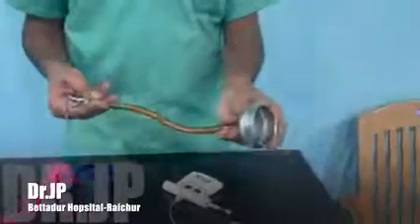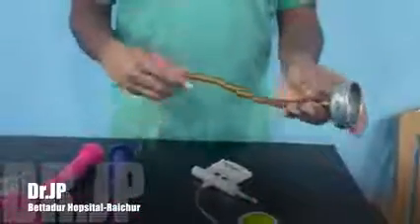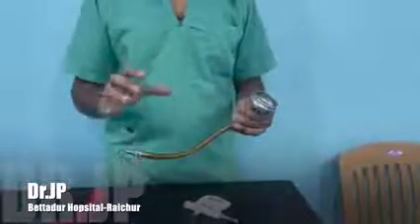The tubing eventually connects to the suction apparatus. It has a release valve where we can release the pressure whenever we want. Malmstrom's innovation really revolutionized instrumentation delivery. In Malmstrom cups, the good thing is there is a good amount of distance between the cup and the operator so that a good amount of traction can be generated. However, the disadvantage is that there will be leakage of pressure because of the many connections involved.